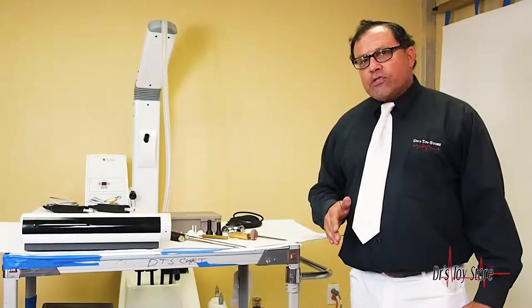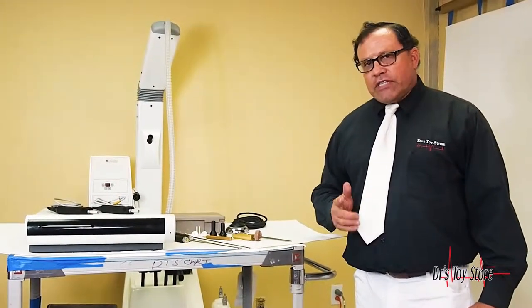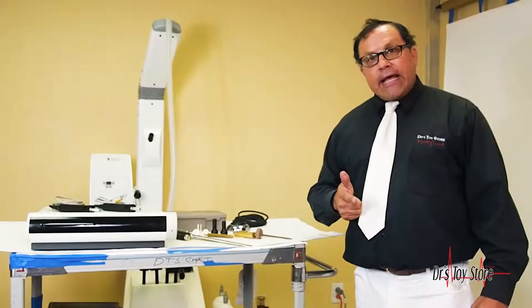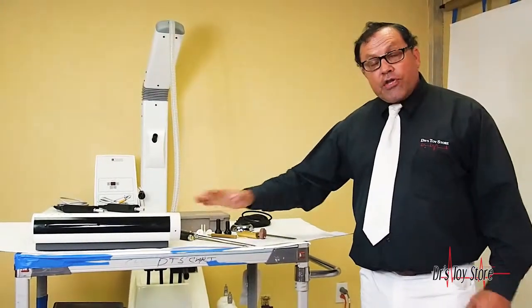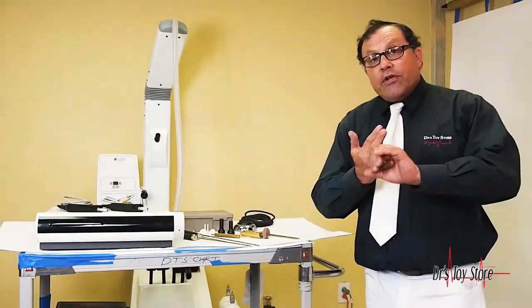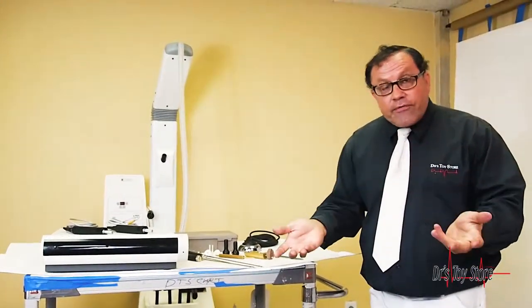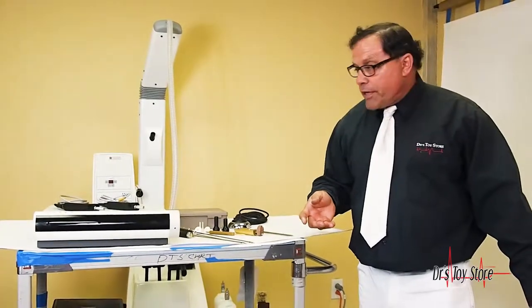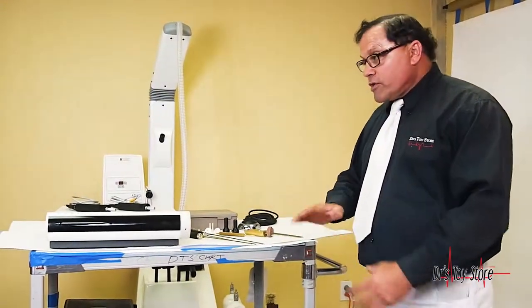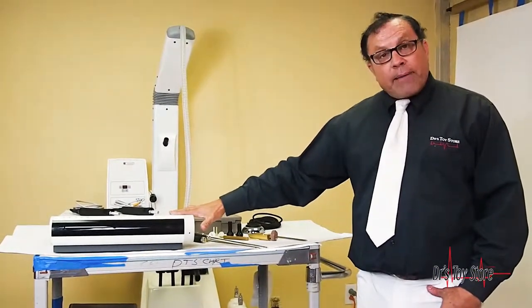We have it here at the Doctor's Toy Store. 877-DRS-TOYS. Visit today. And this is all you need. You can have your own suction and your own infiltrator. Your own suction is suction, and an infiltrator is an infiltrator. So you don't need this big piece of equipment here. You need your own canisters. So it's a lot less expensive to buy the amp by itself. Call the Doctor's Toy Store today and get yourself a Vaser.